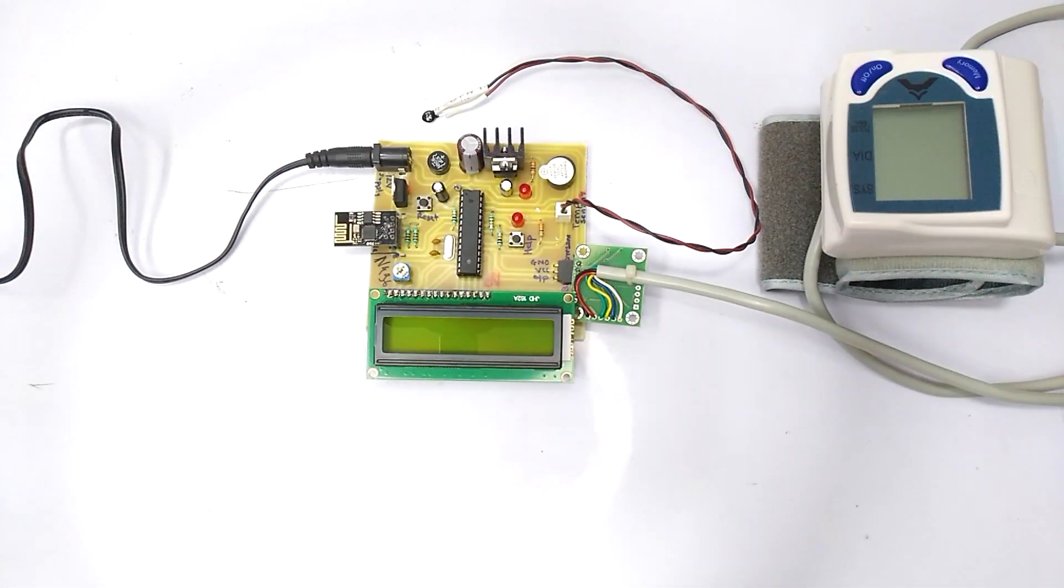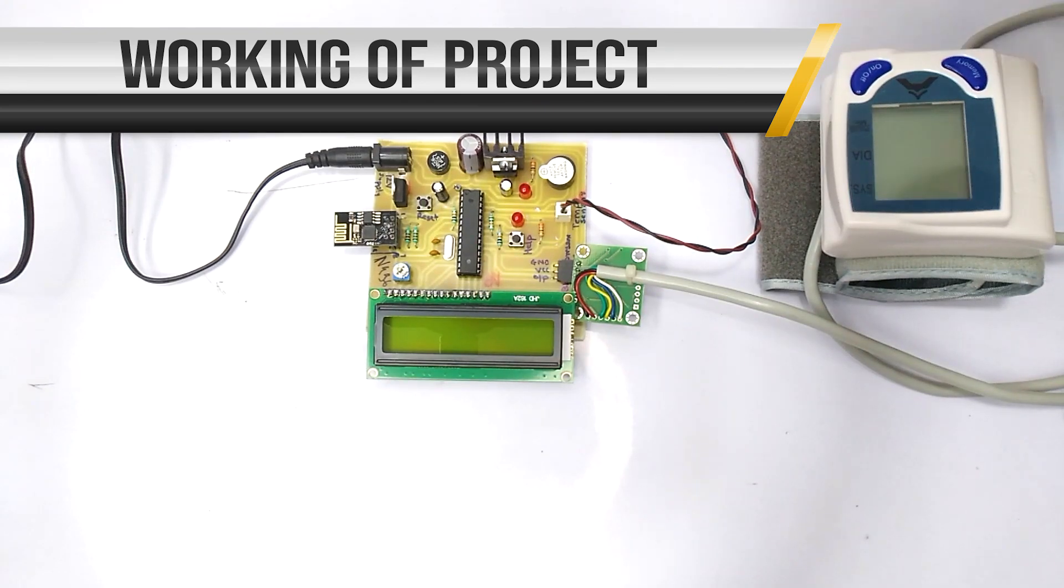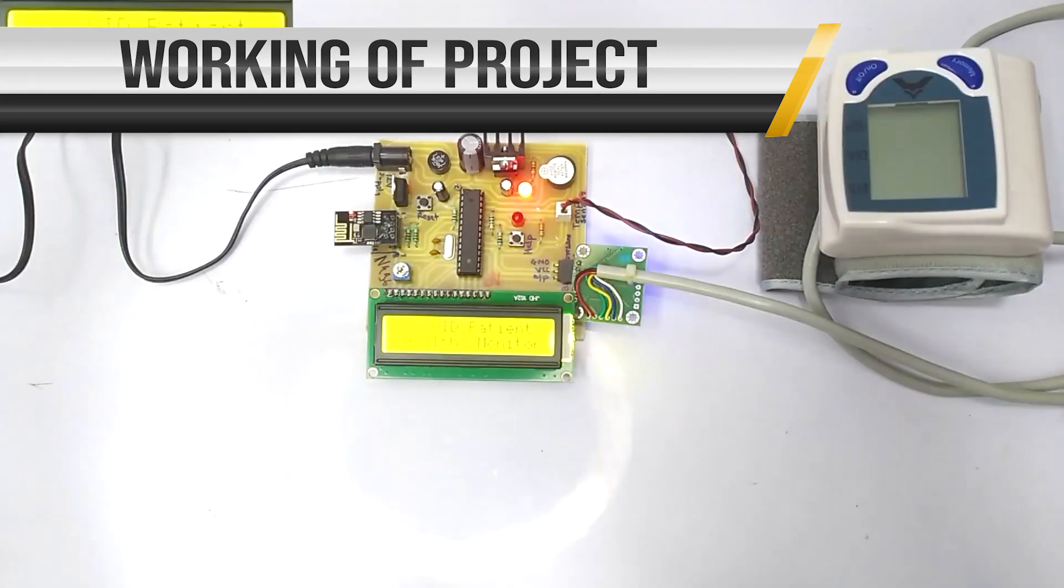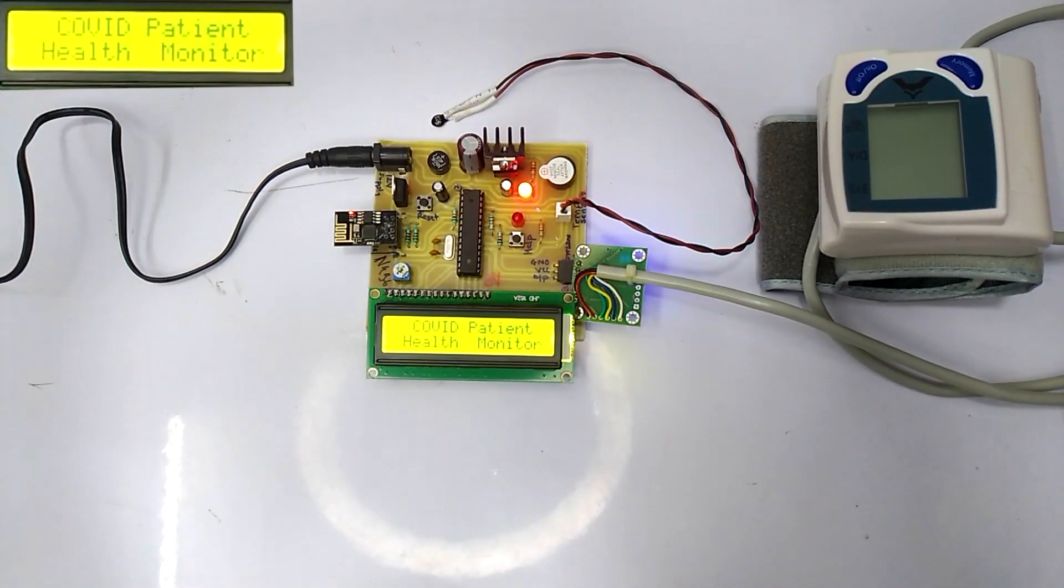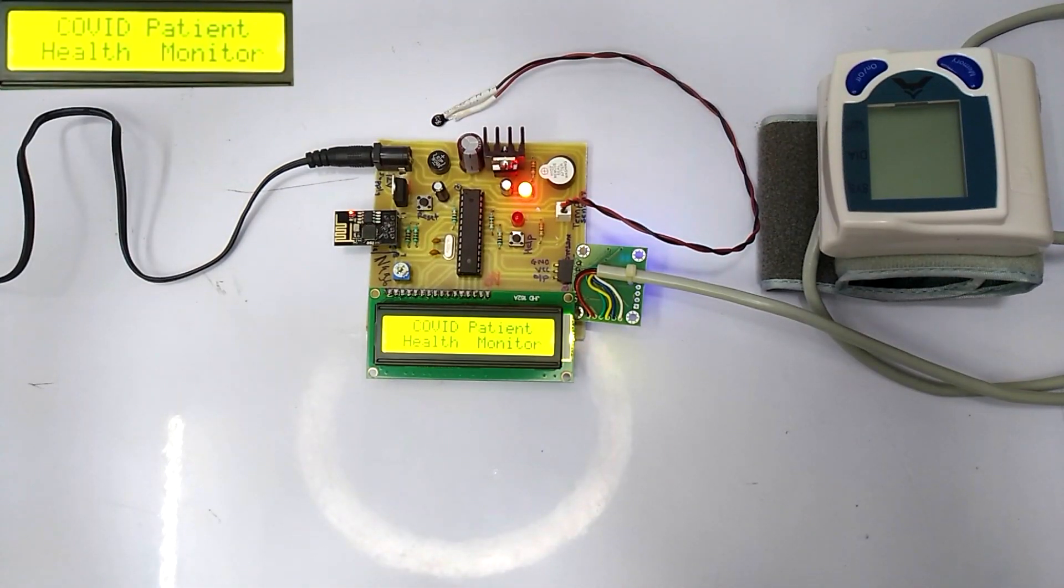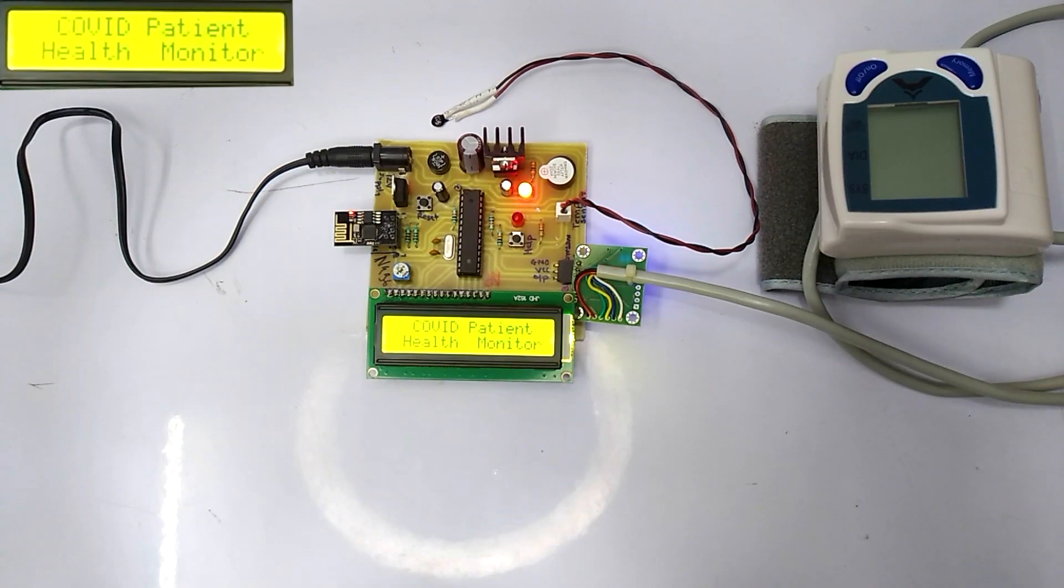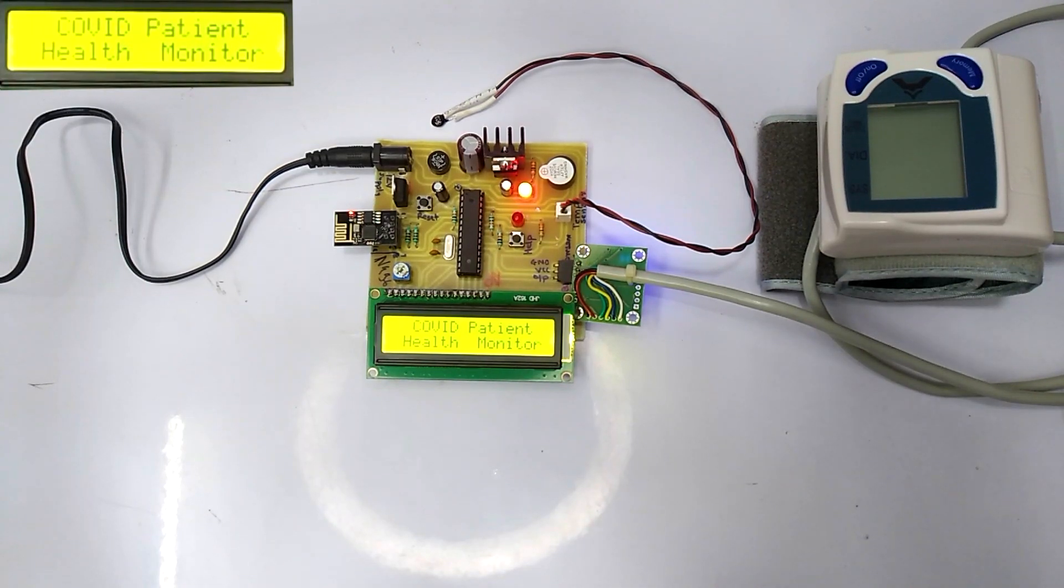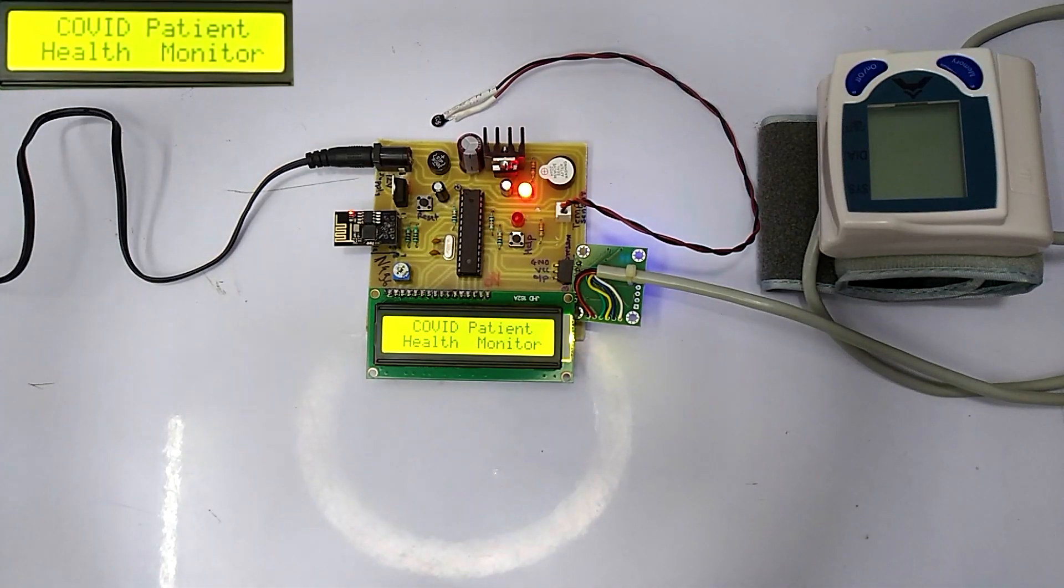Hello friends, welcome to nivonprojects. Today we are going to demonstrate the working of IoT Covid patient health monitoring in quarantine. As we know, the coronavirus and other viruses are dangerous and harmful for society. With the help of this system, we can keep track of patients' body condition. If they need any medical help, we can alert the respective authorities on the press of a button.